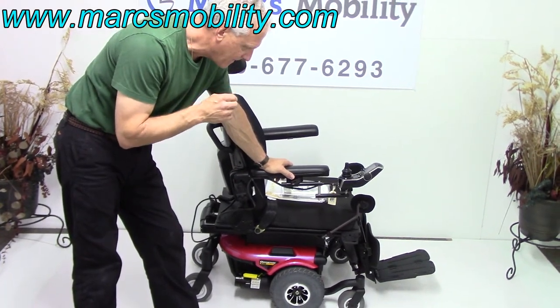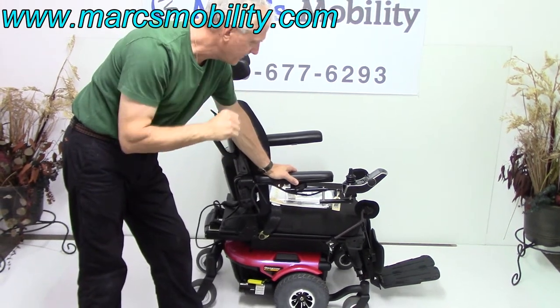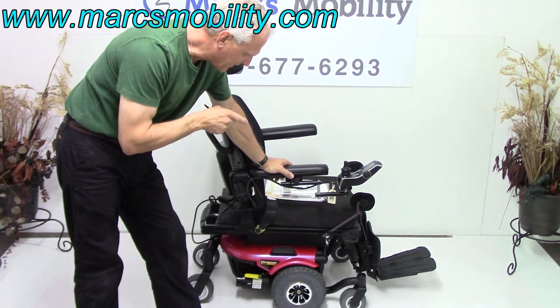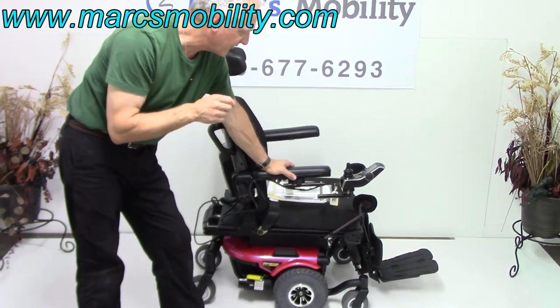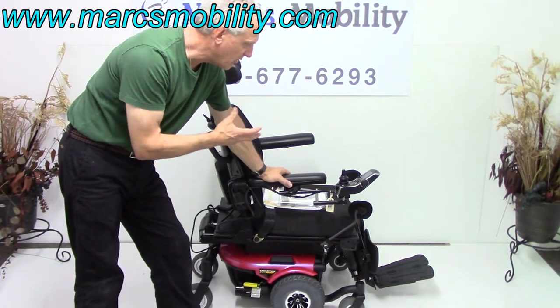This chair has a 10-inch seat lift. It has electric tilt and electric legs, so it has three functions. The nice thing about this power chair is it's not a big power chair, so you're getting the full benefit of a large Q6 Edge or Permobil in a smaller size.